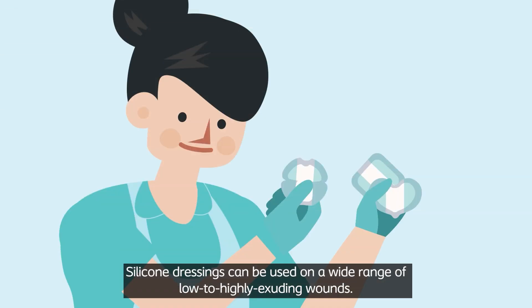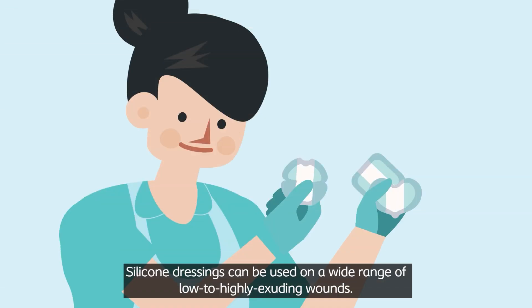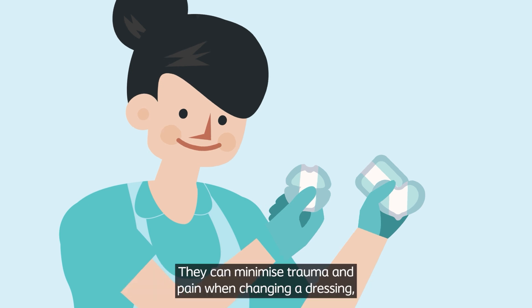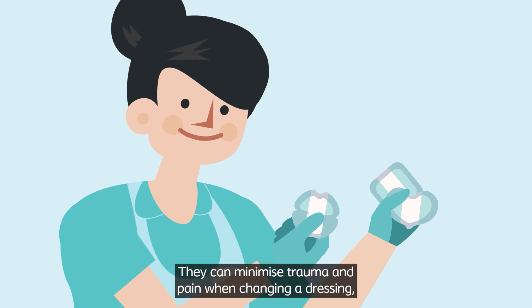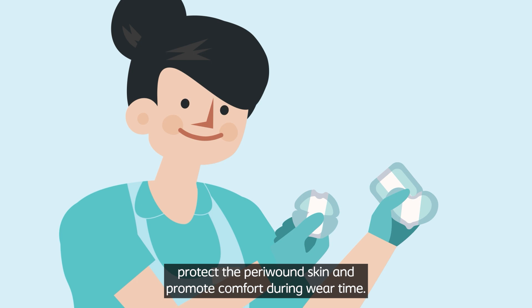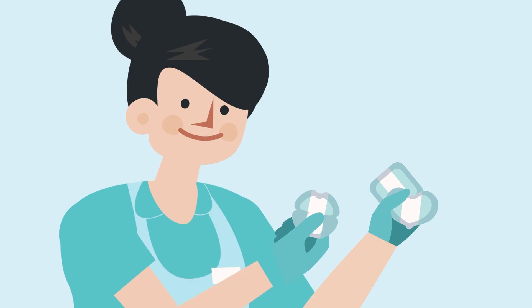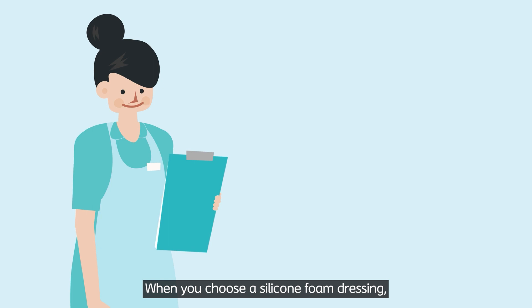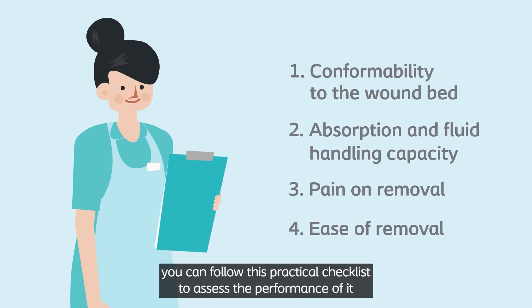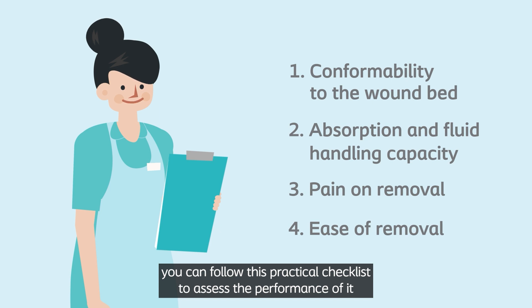Silicon dressings can be used on a wide range of low to highly exuding wounds. They can minimize trauma and pain when changing a dressing, protect the peri-wound skin, and promote comfort during wear time. When you choose a silicon foam dressing, you can follow this practical checklist to assess its performance.